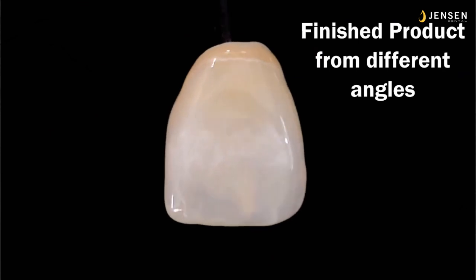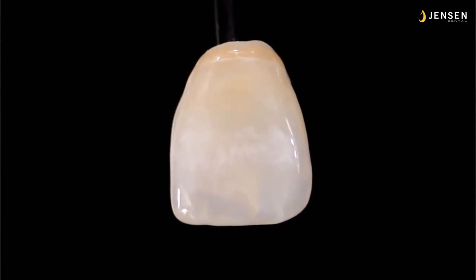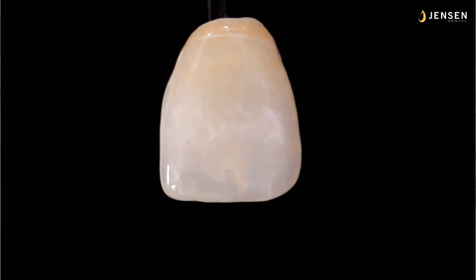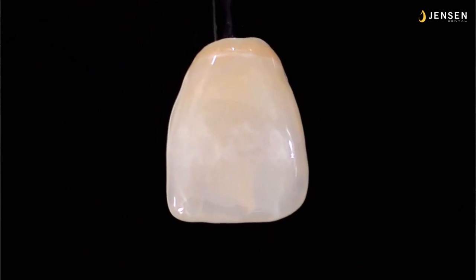So here I am rolling it back and forth at different angles, and you can see the effects. Very subtle. I put a little hypocalcification between the root section and the dentin of the body of the restoration. So there we go.